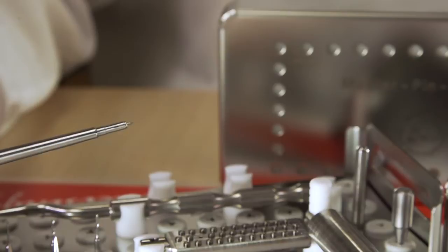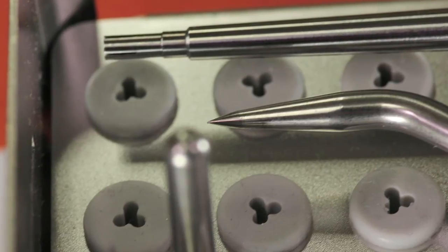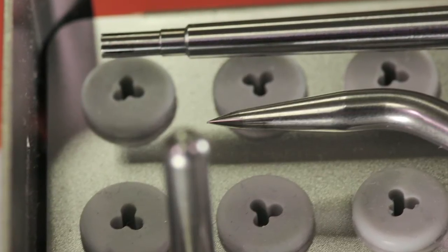The kit also contains a pre-tap device for assisting in hard cortical bone and small drills for pre-drilling if desired.